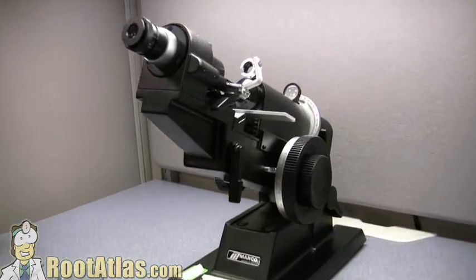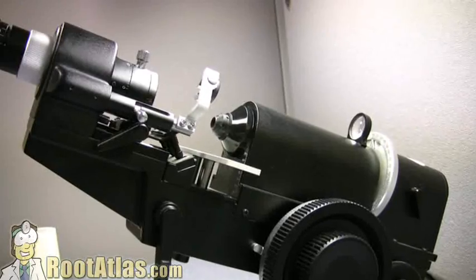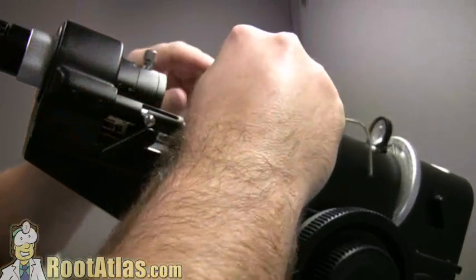In this video I wanted to show you how to use the Lensometer. The Lensometer is a device used for checking prescription glasses and can be a little confusing.